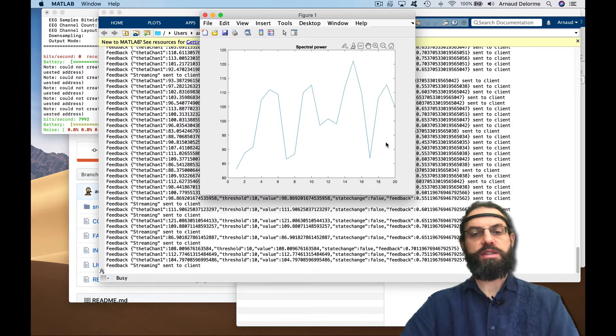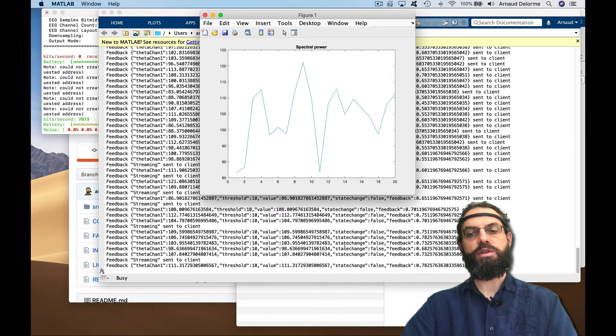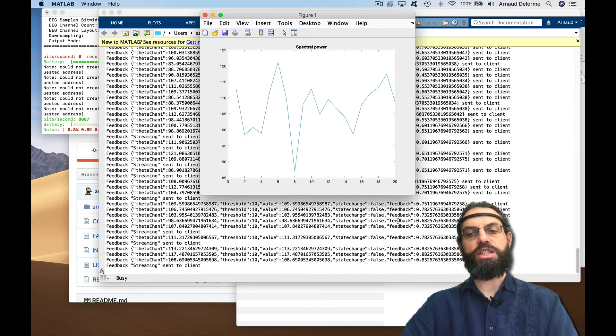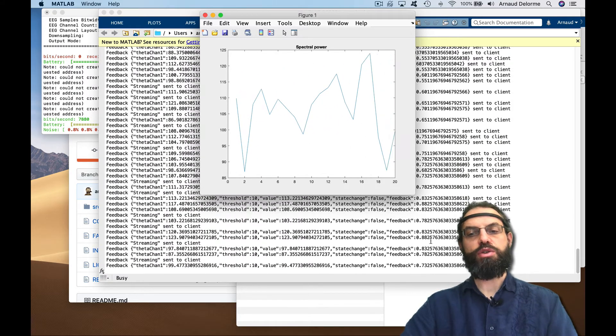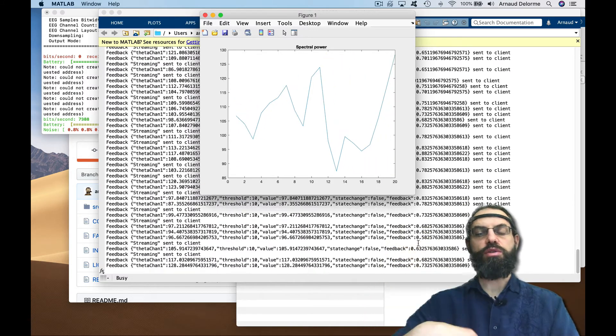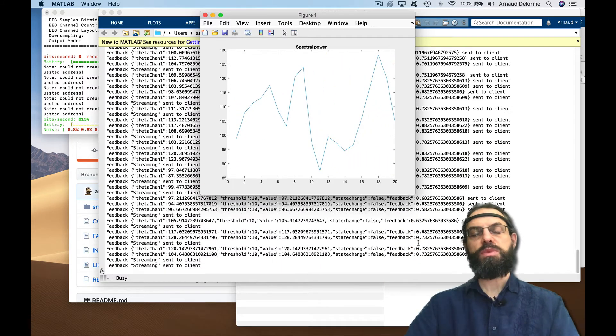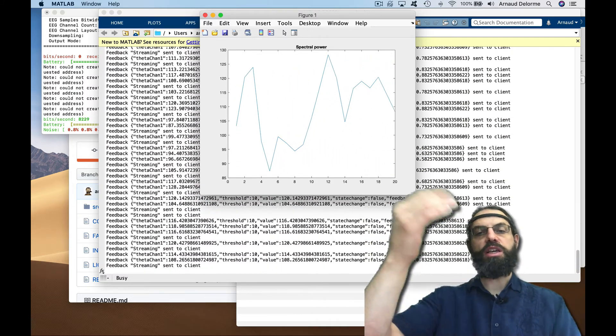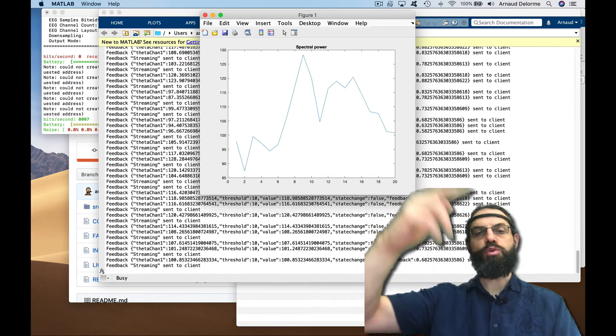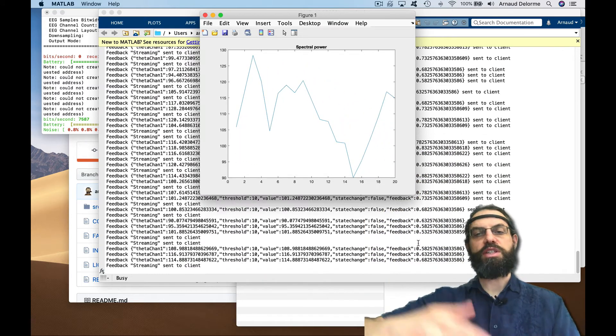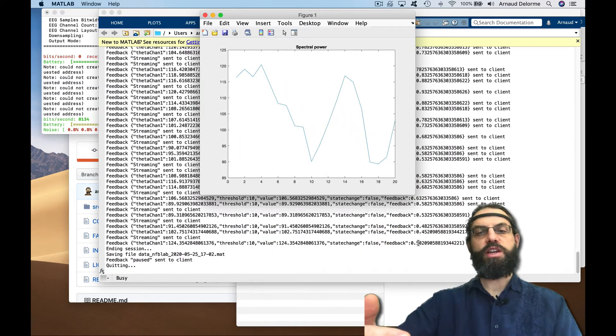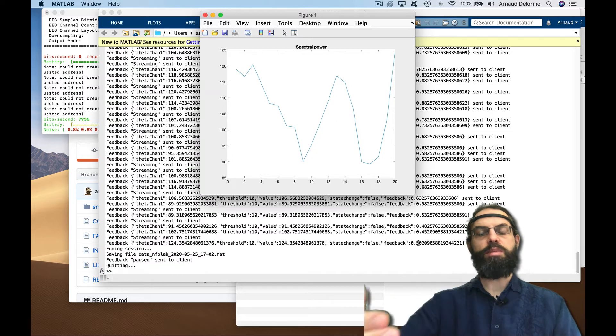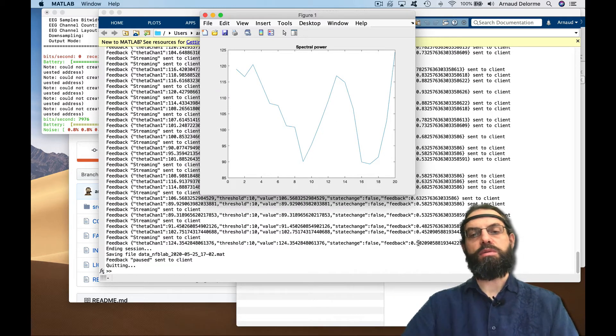It's going to plot this curve, which is basically the real-time spectral power. That's the same type of value that's returned here. In addition, there is also a threshold, so if it's above the threshold there's a dynamic range. That's just a very simple demo of plotting.